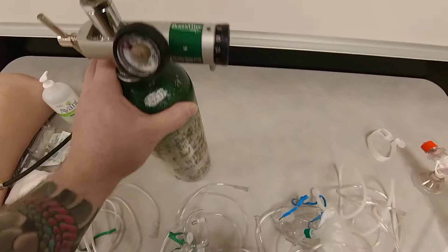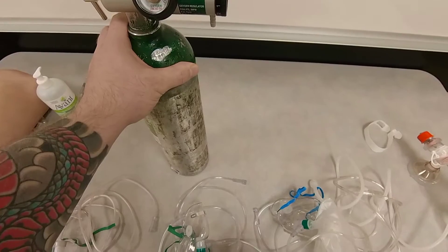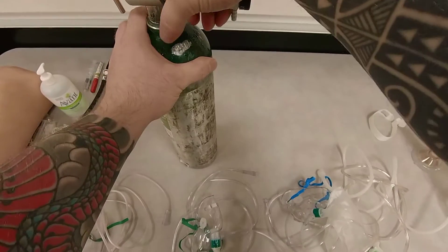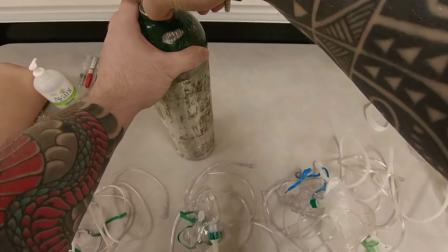Now, the caveat to this is that I'm not giving them 25 liters per minute continuously. I'm only doing this for the time period that I want to do nitrogen washout and pre-oxygenation.